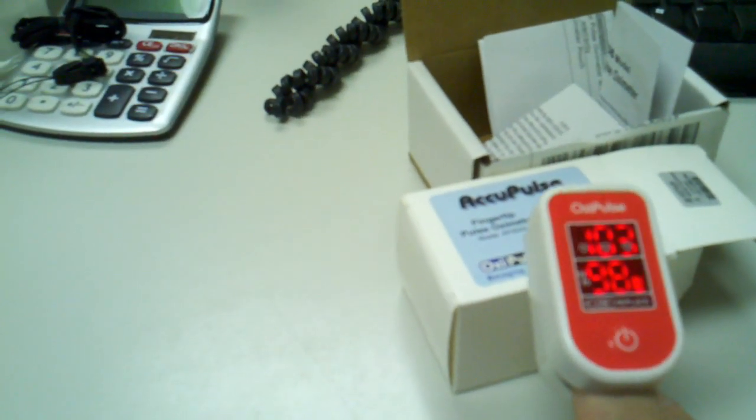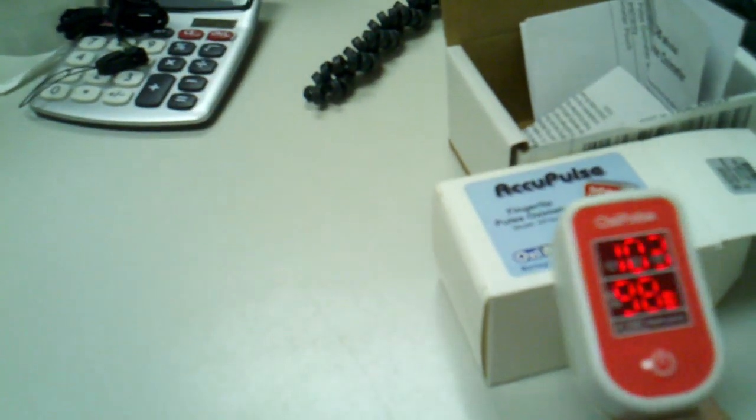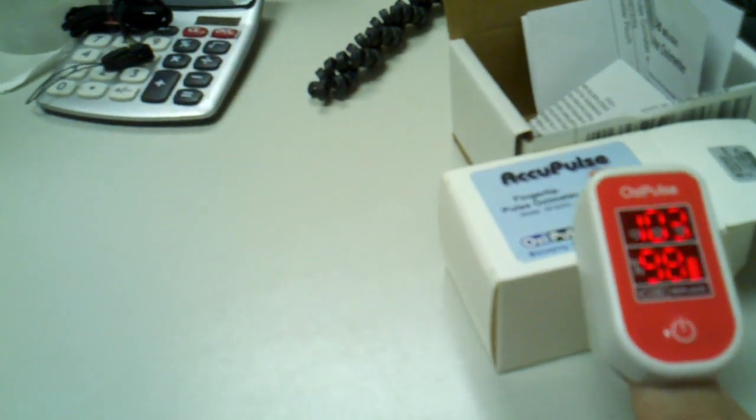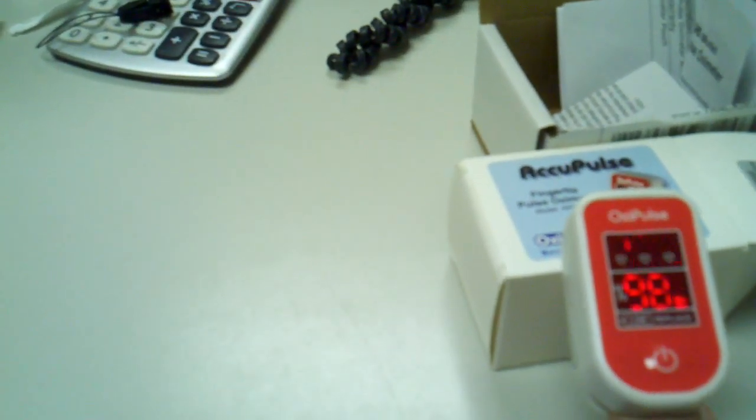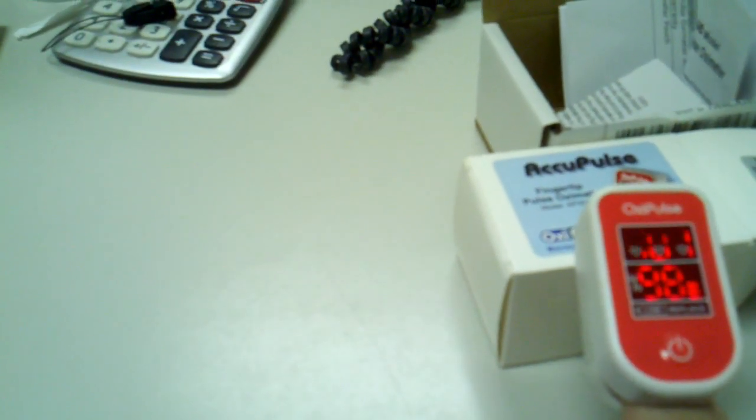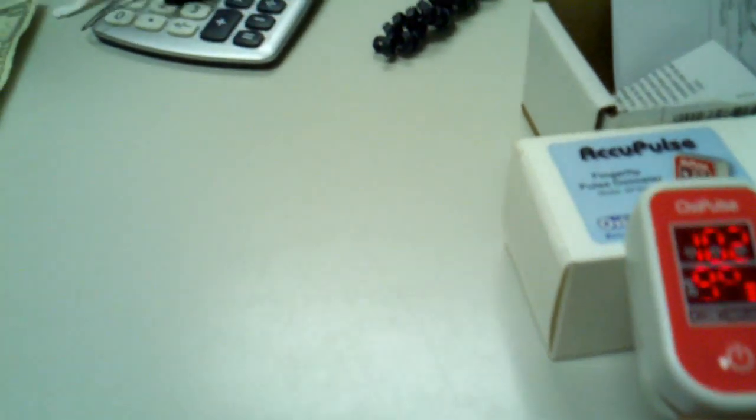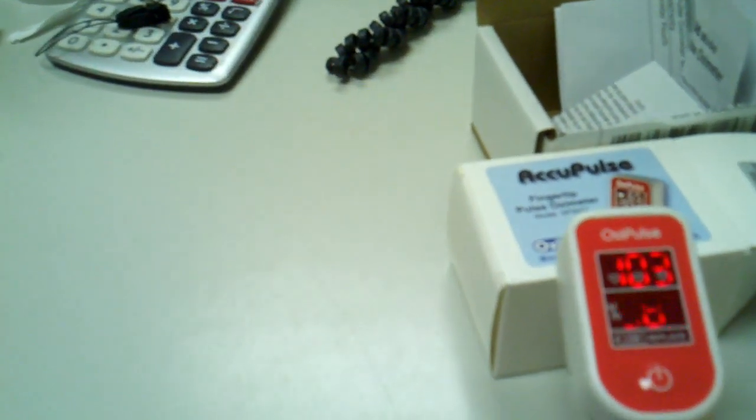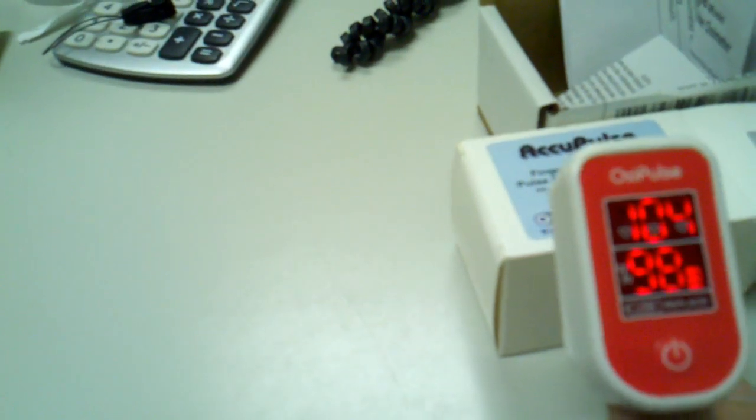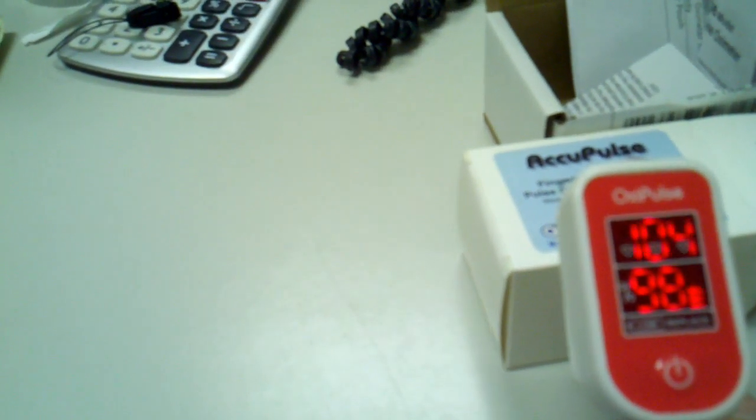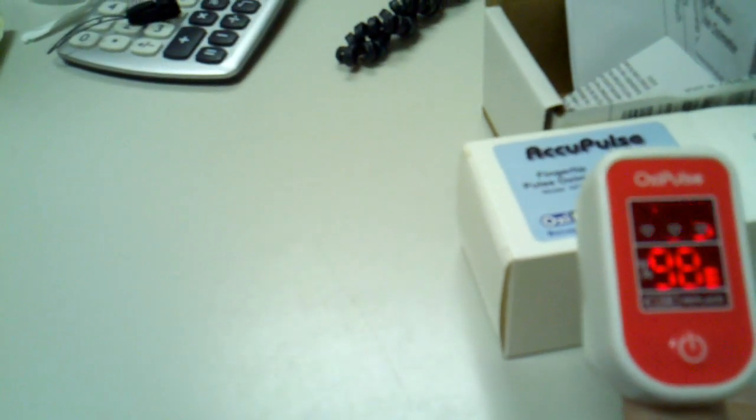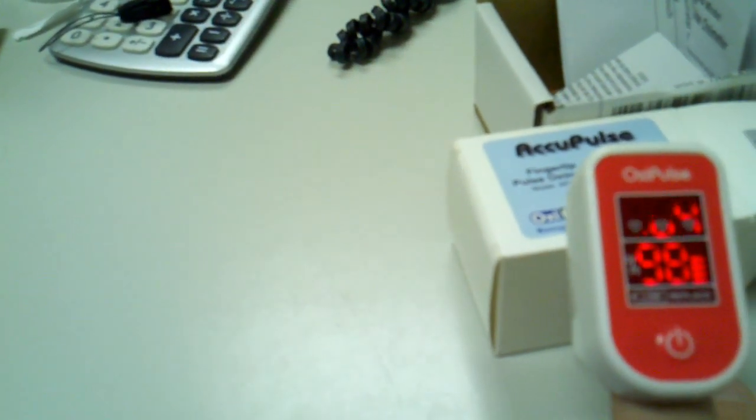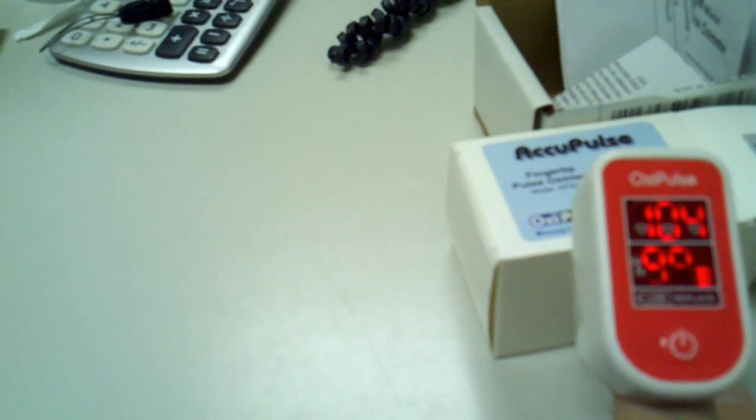Those LED lights will set a ratio, and you can see that my heart rate's around 100 beats per minute. You can see right next to the oxygenation percentage is at 98, and you can see my heartbeat to the right of it.